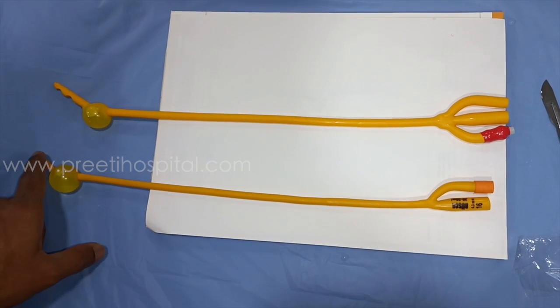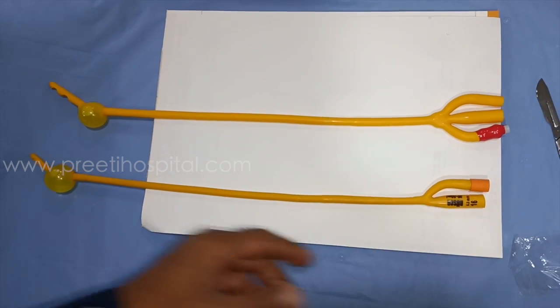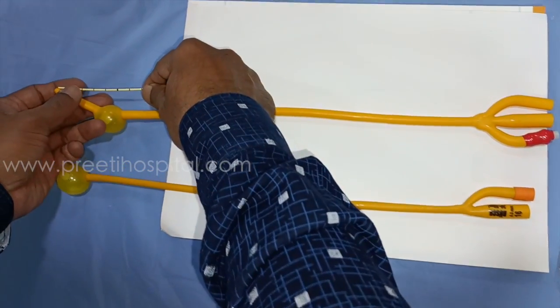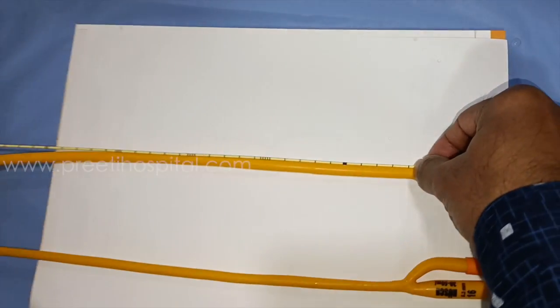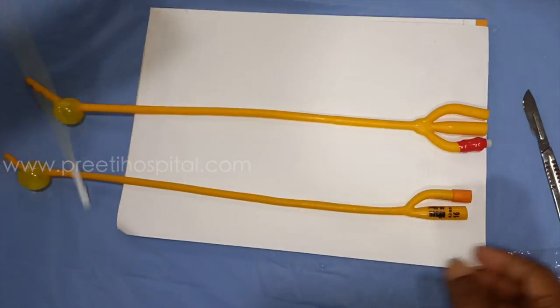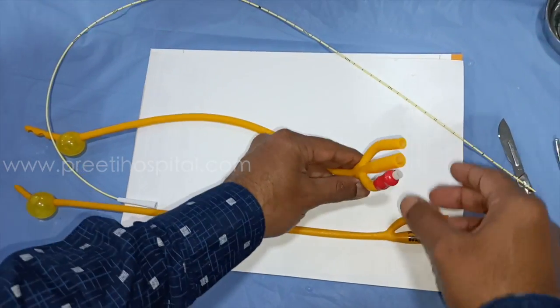Whether we are draining, whether you are using the catheter for better drainage, or irrigation, or clot evacuation — we have to know. On an average, this is a 35 cm length Foley's catheter.